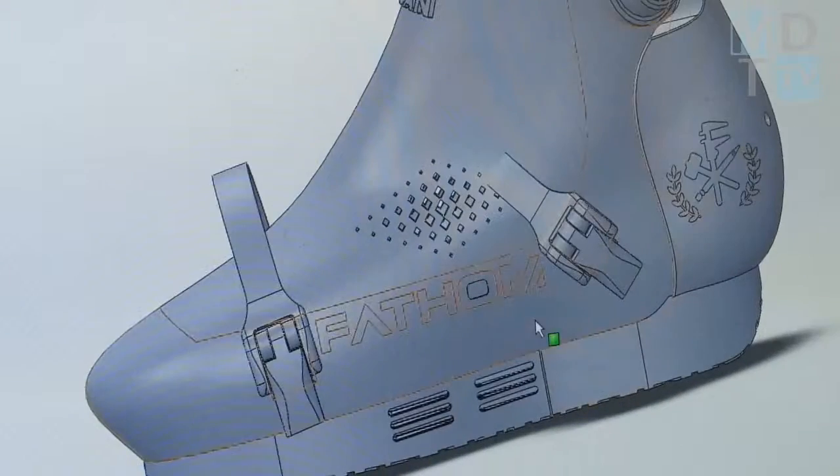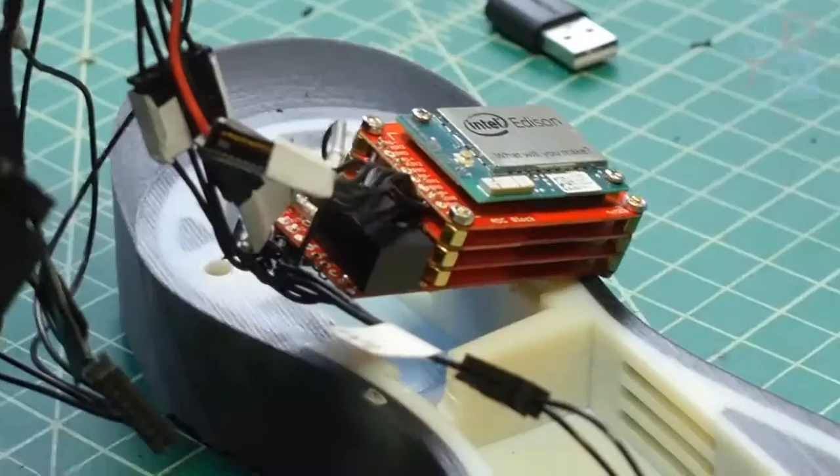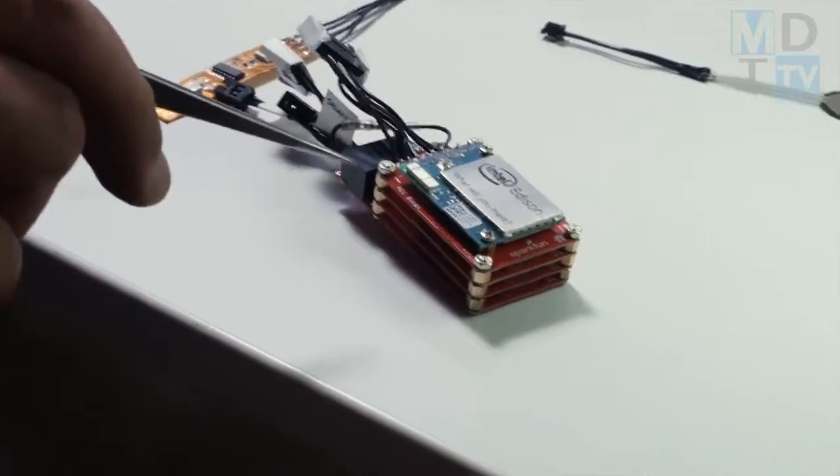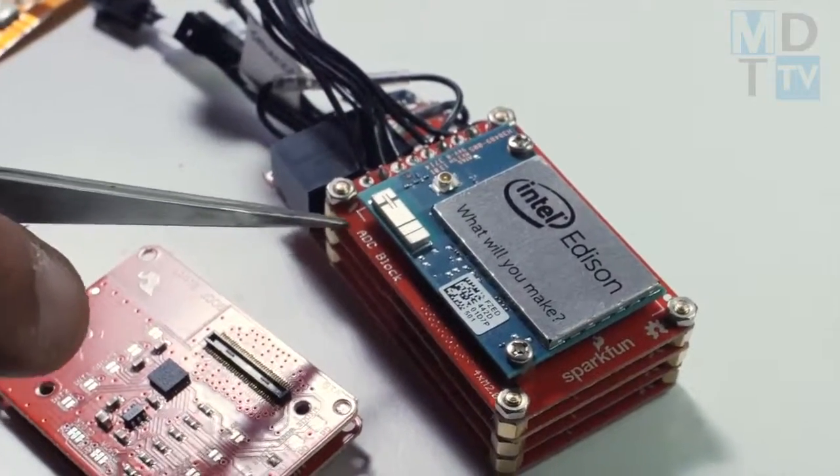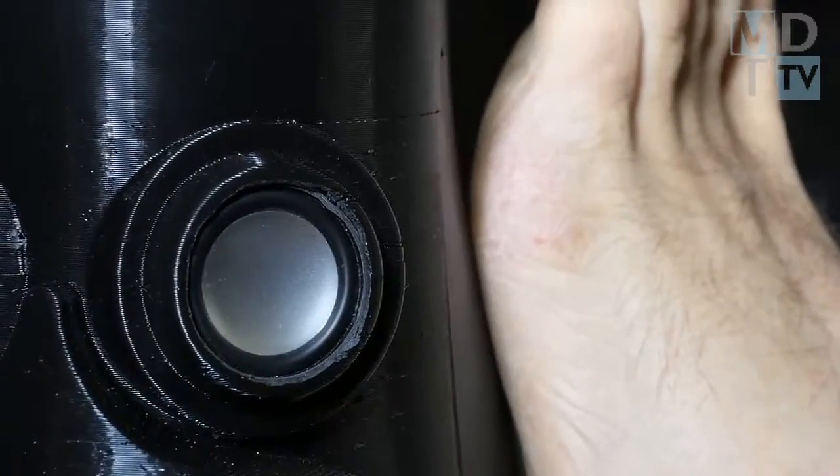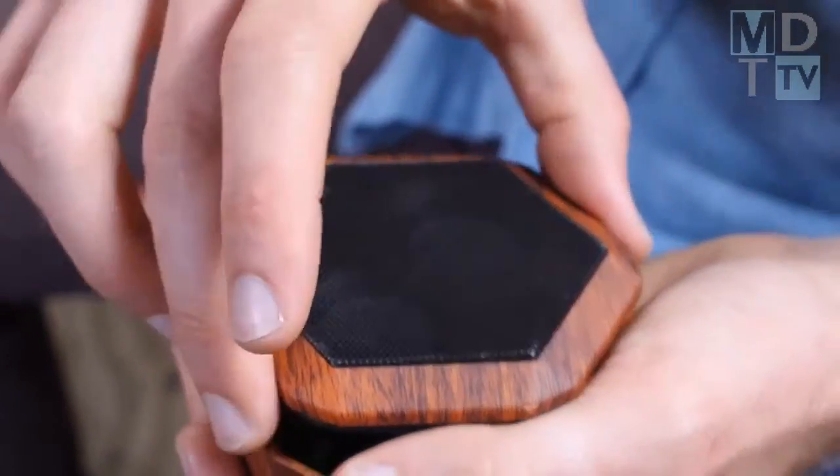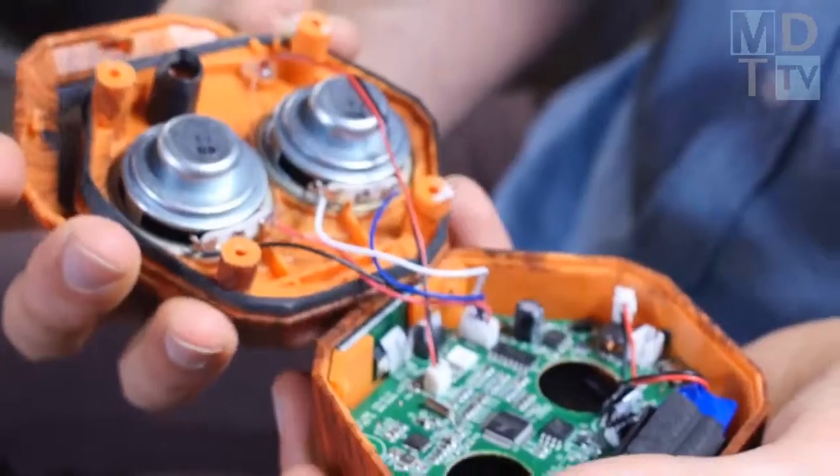It also has a sole like a shoe and built-in sensors that track your walking. By far the most exciting feature, albeit the least medically relevant one, Boomcast has a boombox built right into the cast. Rest assured, if I ever break my leg and get one, Queen's I Want to Break Free is the first song blasting out of those speakers.